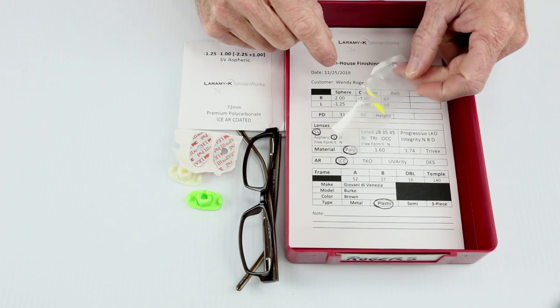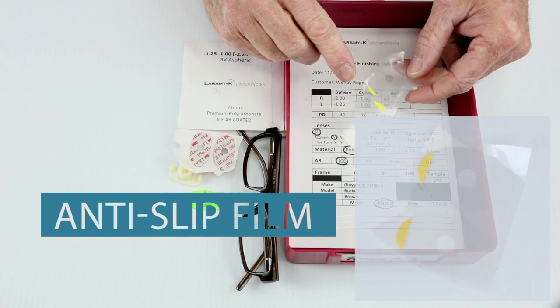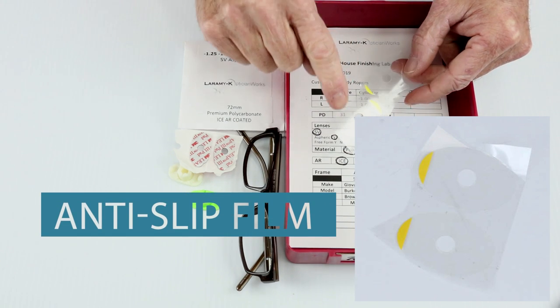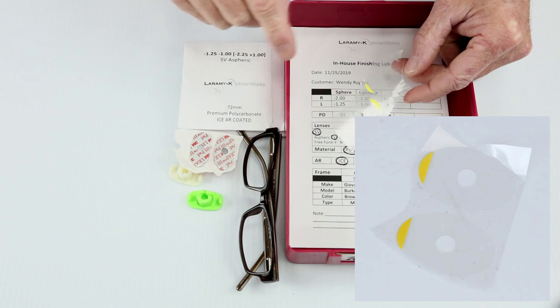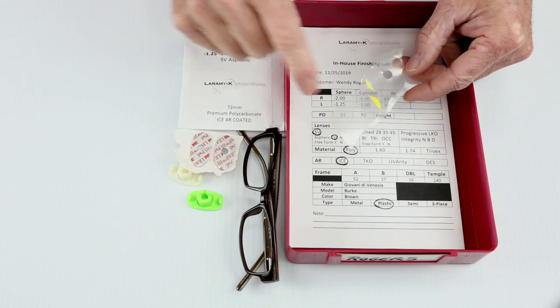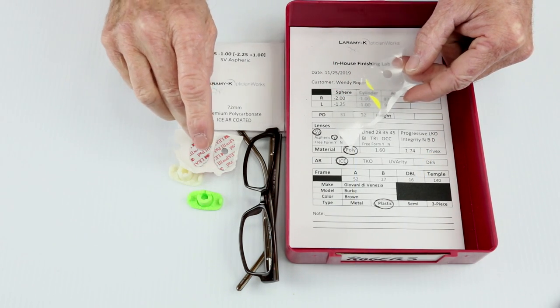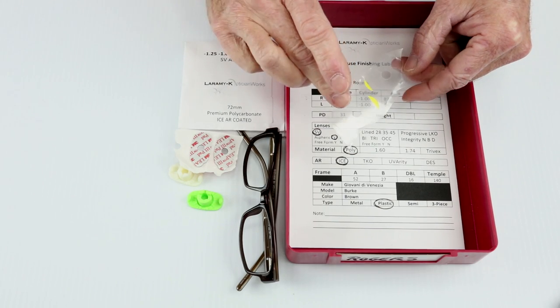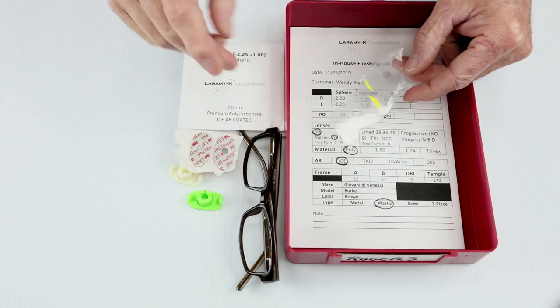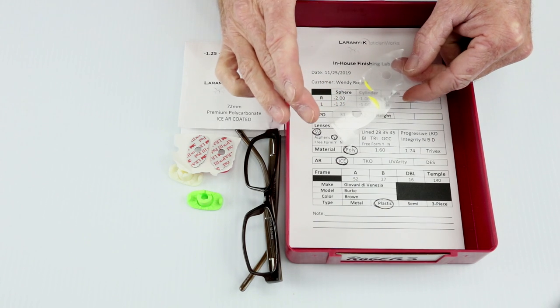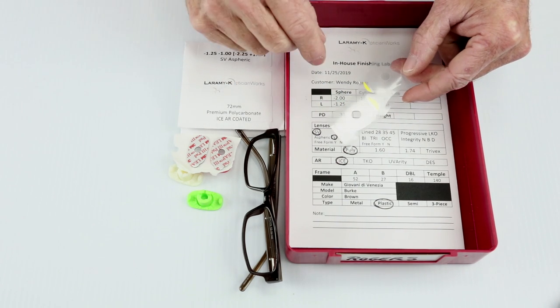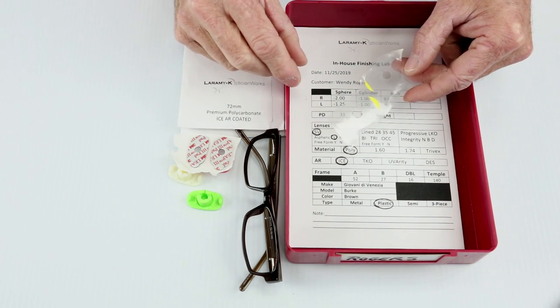We are also going to find and need a set of leap pads. Leap pads are simply adhesive stickers that hold the block to the front of the lens. Because this job does call for an AR coating, and I know these are hard to see, we are also going to require anti-slip intermediate film pads, and what these do is greatly increase the adhesion between the block and the leap pad and the lens so you don't get slipped. Some of these super high AR coatings are so slippery that the lens has a tendency to rotate when it's hit with the edging wheel.